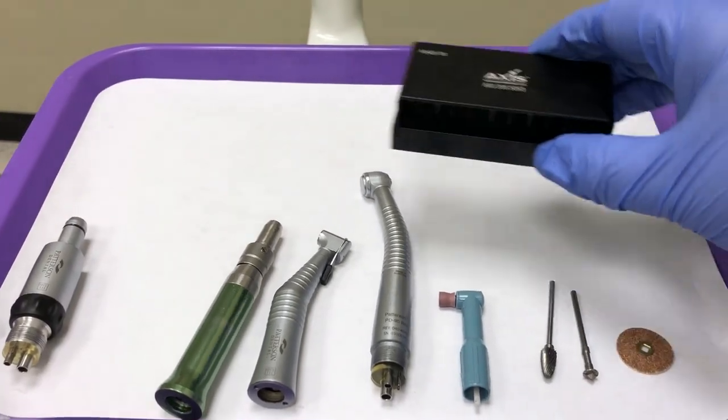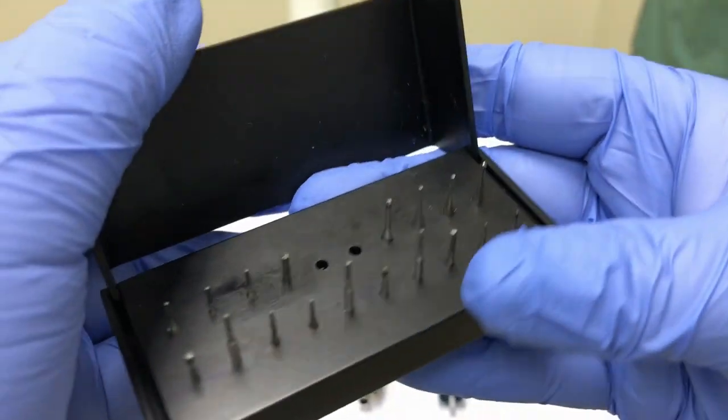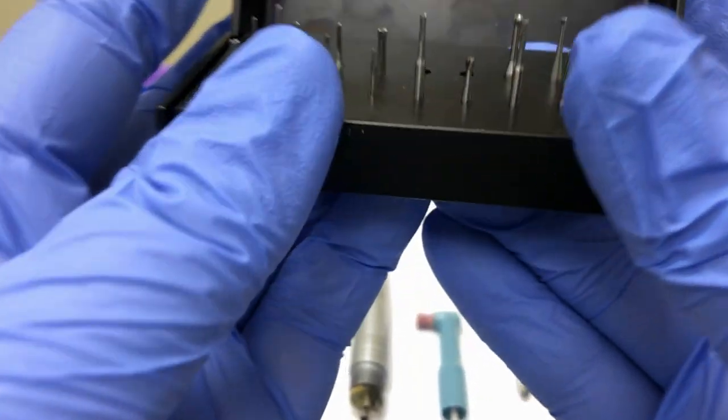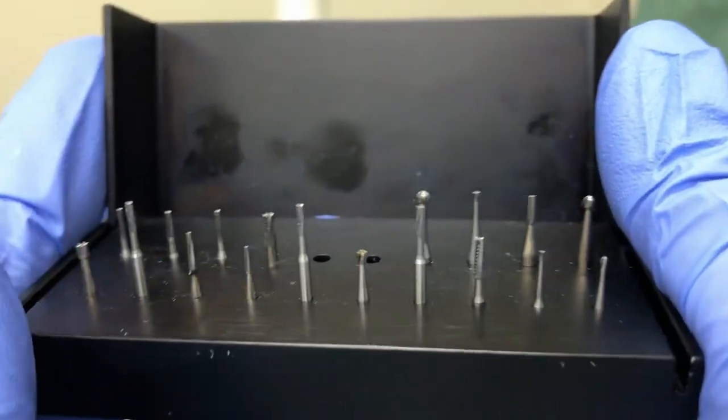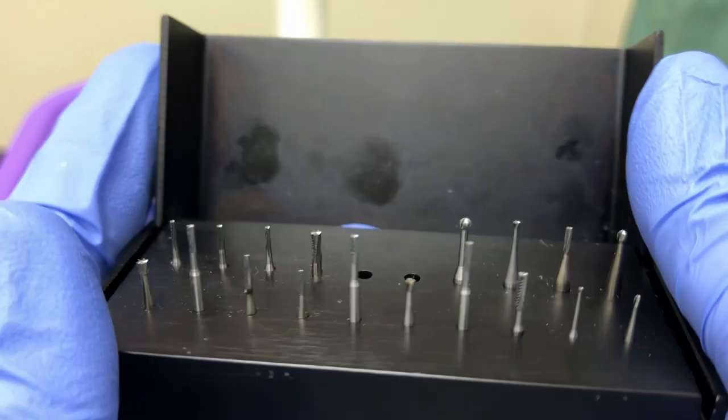This is a burr block which contains your restorative dental burrs. These are just a few examples of the wide variety of restorative burrs available for tooth preparation.